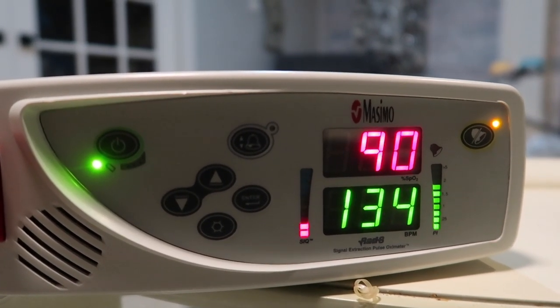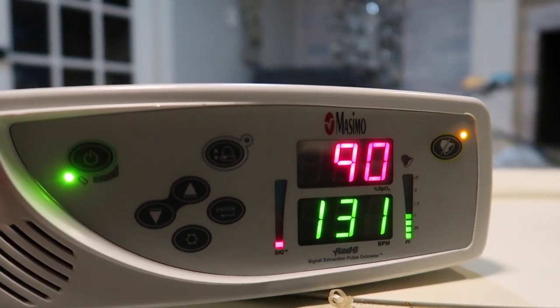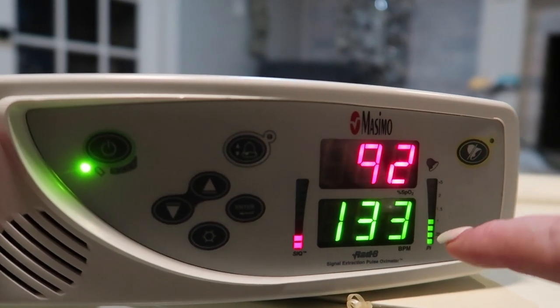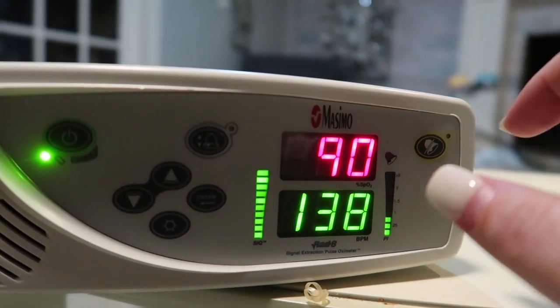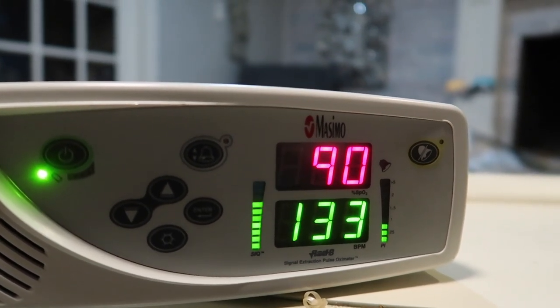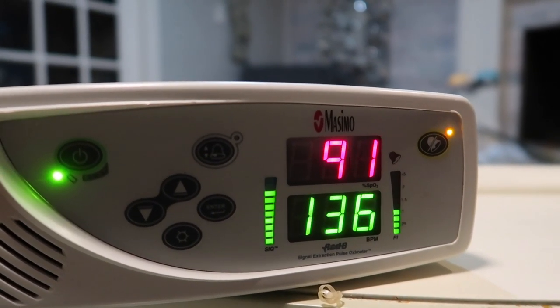The pulse ox isn't on him correctly even though we put it on this morning. So I think it's time to take all the tape off, see how he does, and give him his very first real bath. I'll show you guys what his pulse ox monitor looks like. Right now it's saying 89 to 90, but that's not an accurate reading based on how he's looked today. Over here is his heartbeat — it wasn't moving correctly at all, that's how we can tell. It also shows accuracy, and it's just not very accurate right now. Cruz should be satting above 94%, and today he's been satting around 97 to 100.